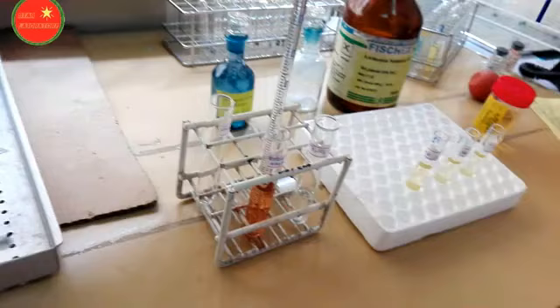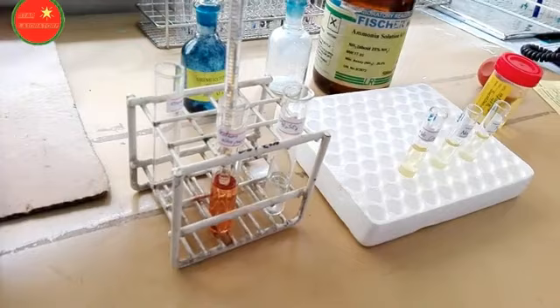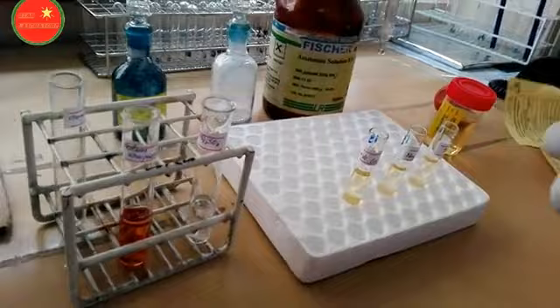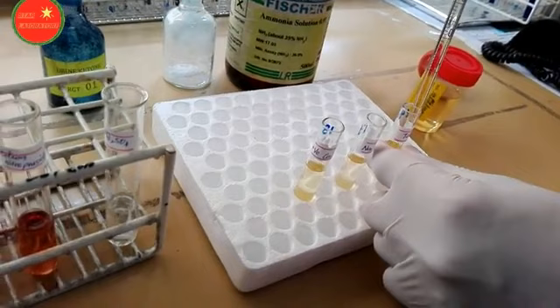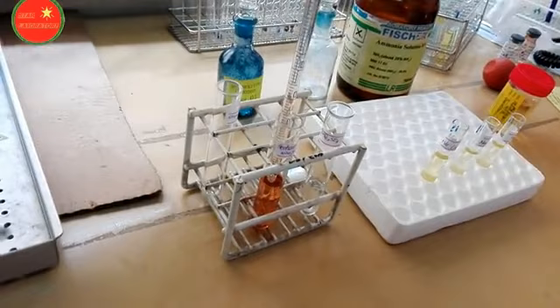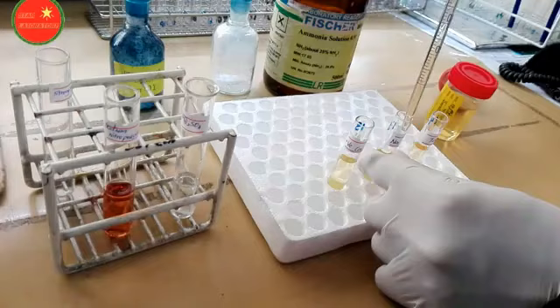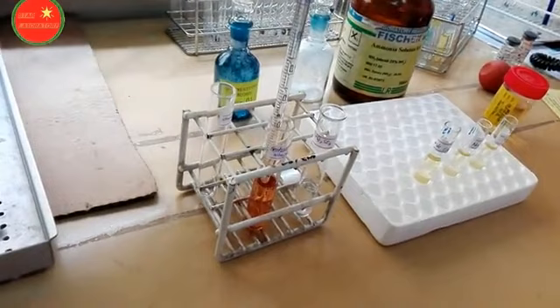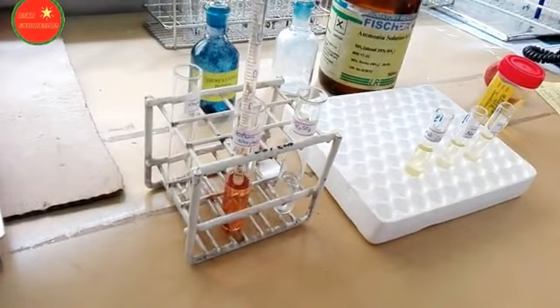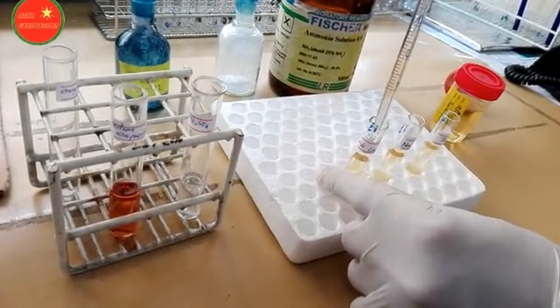After mixing, add 0.5 ml of sodium nitroprusside solution to each test tube. Normally in the laboratory, sodium nitroprusside is available in crystal form; prepare the solution by dissolving it in distilled water. Add 0.5 ml into the test sample, 0.5 ml into the negative sample, and 0.5 ml into the positive sample, then mix well.